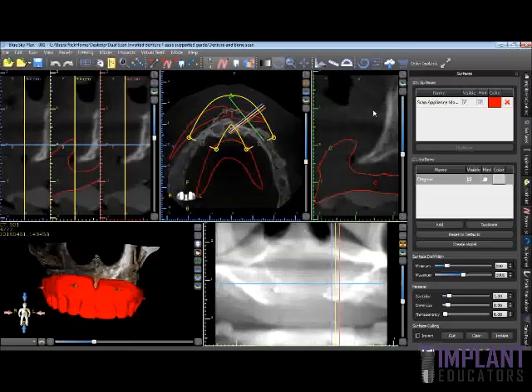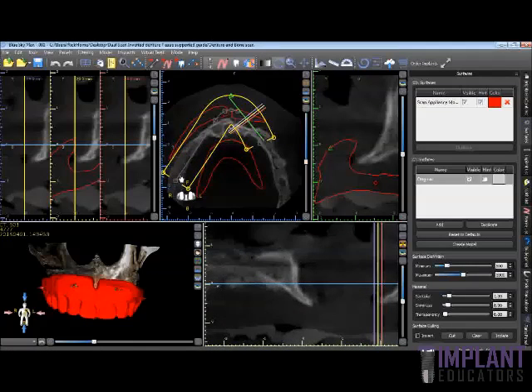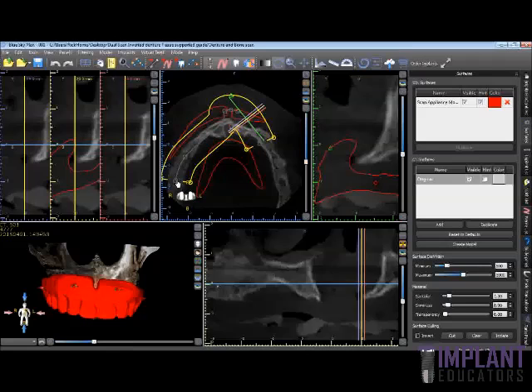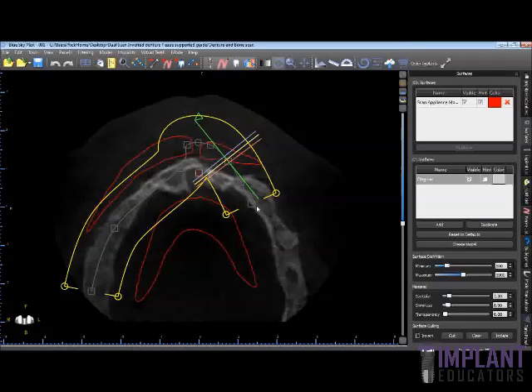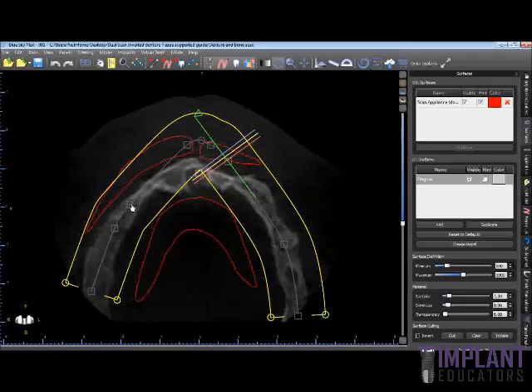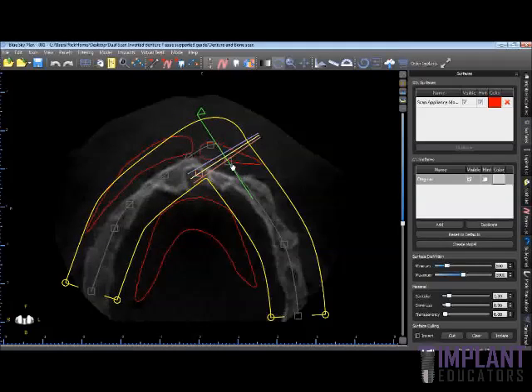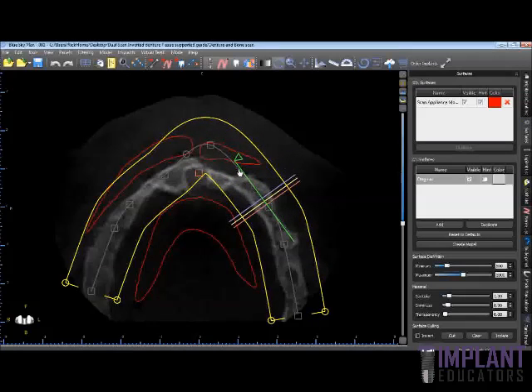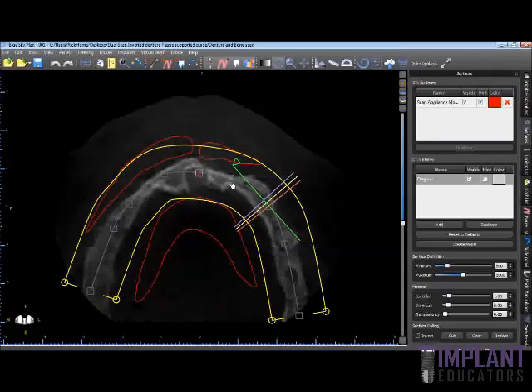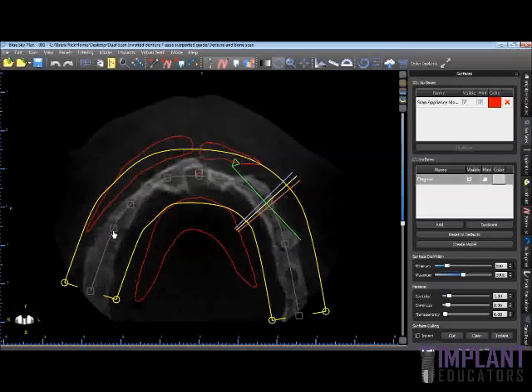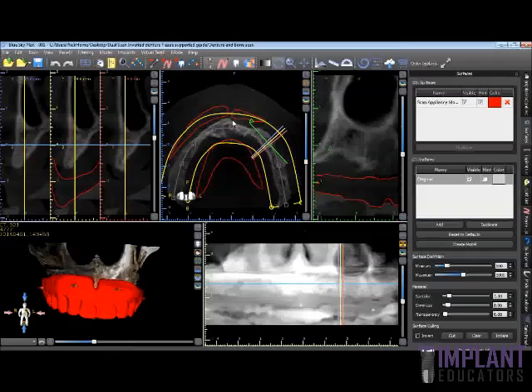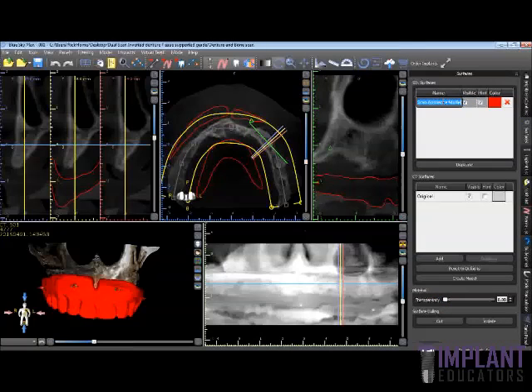At this point, the next step is to fix the curve because the curve here was off. I'm going to fix that and bring it down. Let's make this full screen so we can see those points a little better, and bring this point here to adjust our curve so we can see in our panoramic projection what the image looks like more clearly. That looks pretty good — let's center that up on the bone. So we've got our denture scan appliance and I'm going to rename this 'denture scan.'